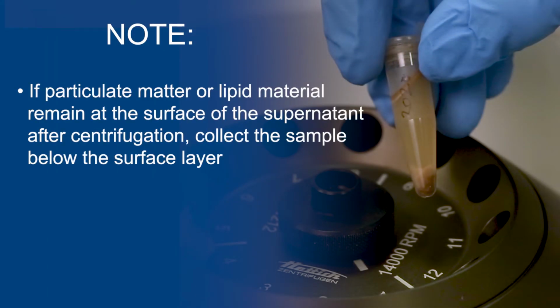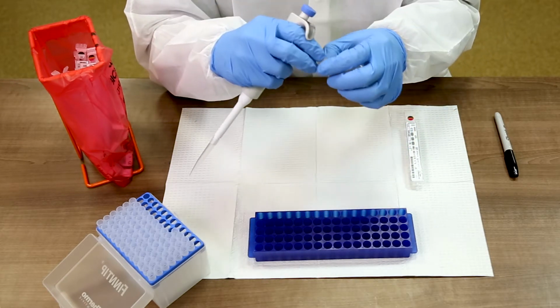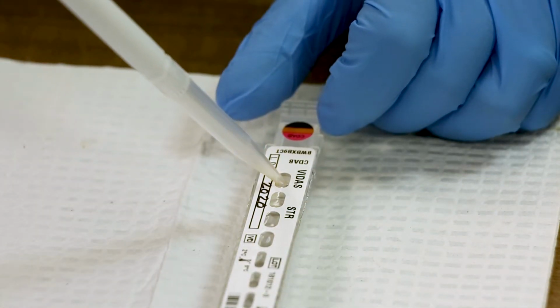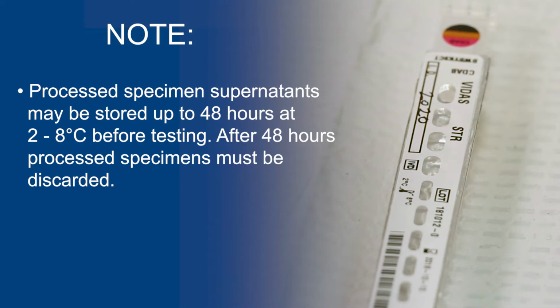Note, if particulate matter or lipid material remain at the surface of the supernatant after centrifugation, collect the sample below the surface layer. Using a pipette with a disposable tip, collect 300 microliters of supernatant and transfer it to the VIDAS C. difficile Toxin A and B test strip. Note, processed specimen supernatant may be stored up to 48 hours at 2 to 8 degrees Celsius before testing. After 48 hours, processed specimens must be discarded.